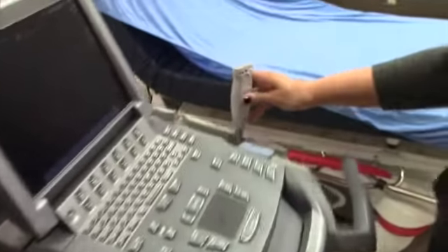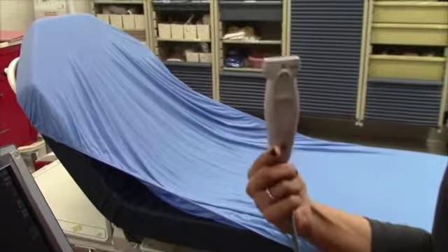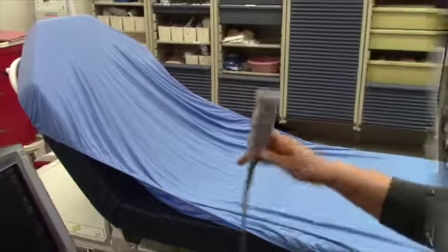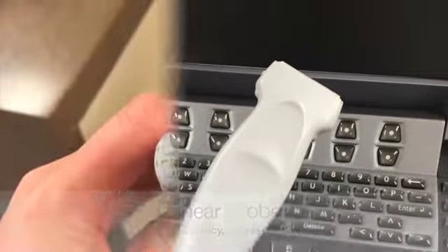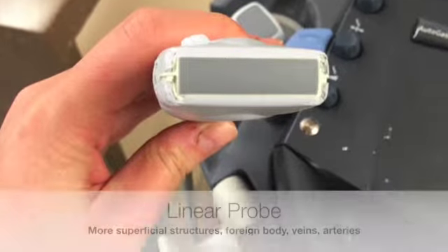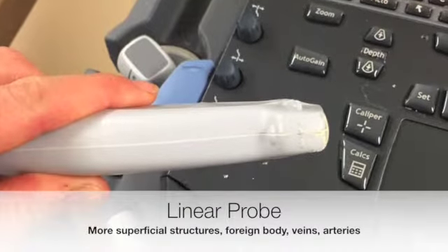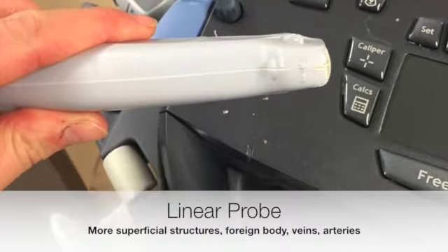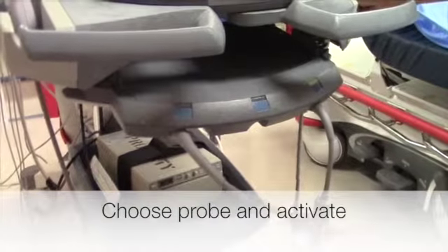For more superficial things like veins and superficial foreign bodies, you would use this linear probe. So to properly connect whichever probe you're interested in using, you just have to press the correct button.